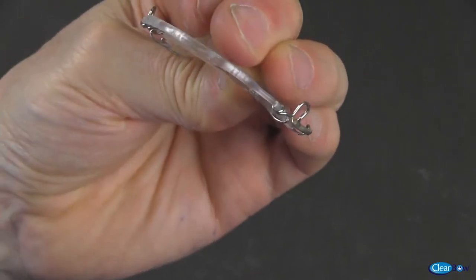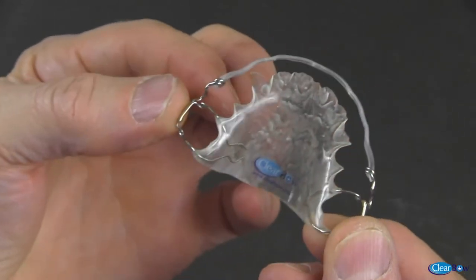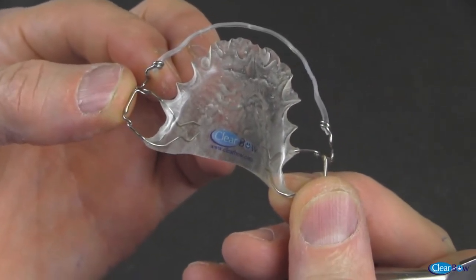The ability to adjust the clear bow without fear of breakage is one of the many reasons that make it the clear alternative for superior orthodontic appliances.